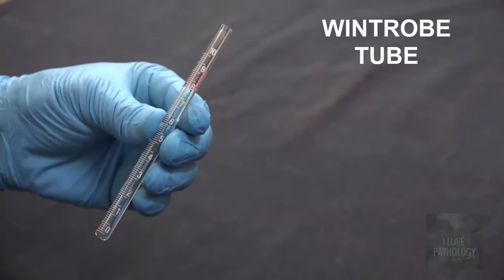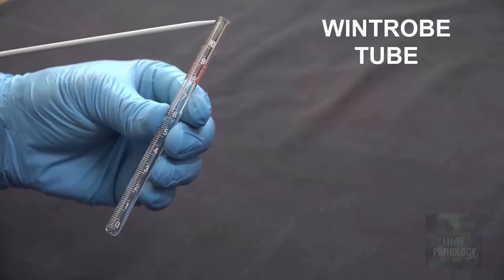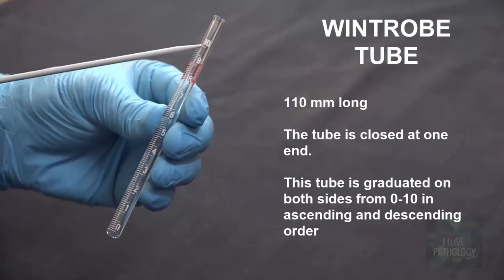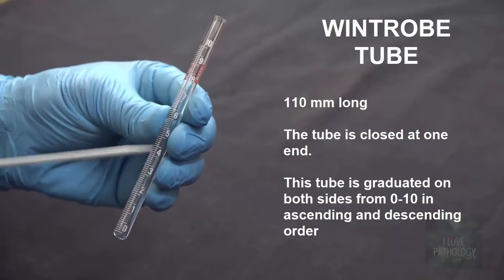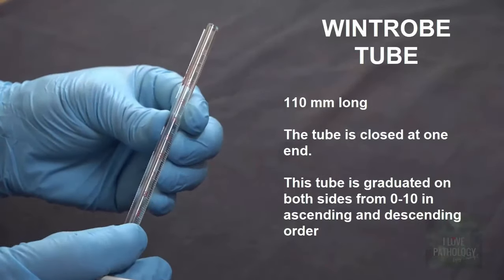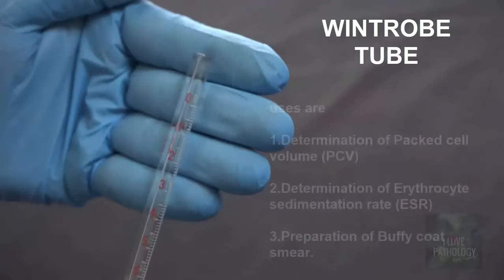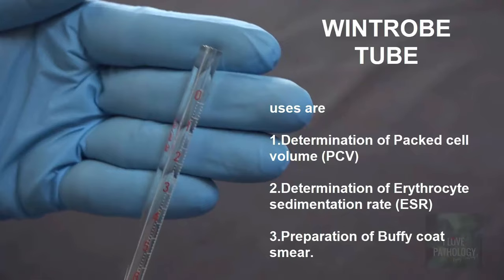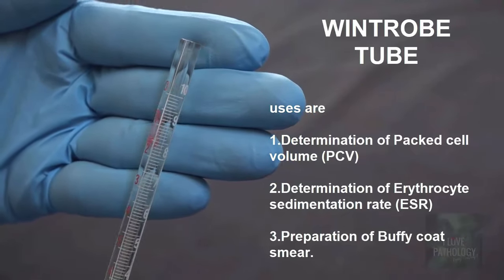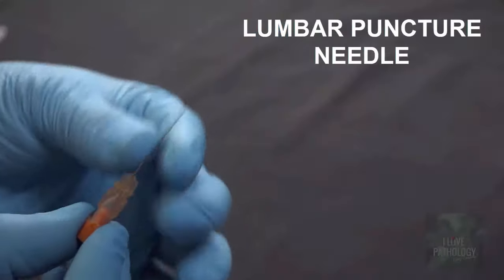This is Wintrobe's tube. It is closed at one end and open at the other end. This is 110 millimeters long. It has graduations from 10 to 0 from above downwards, and on the opposite side, 0 to 10 from above downwards. Uses: determination of packed cell volume or hematocrit, determination of ESR, and also for the preparation of buffy coat.